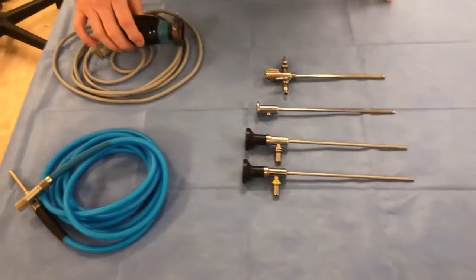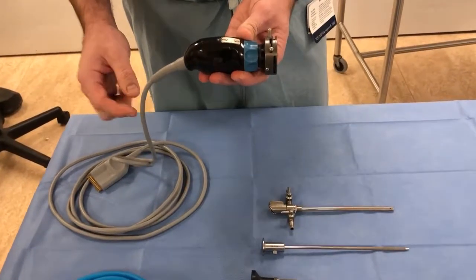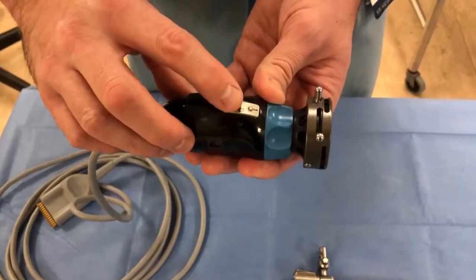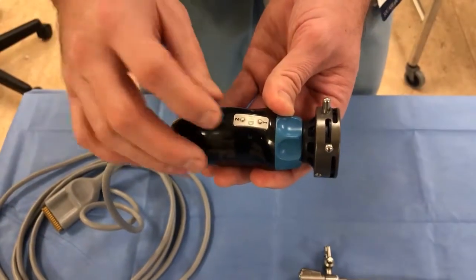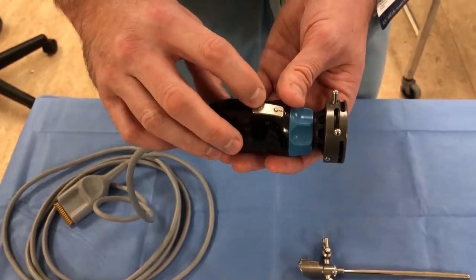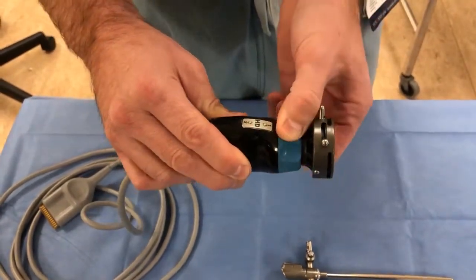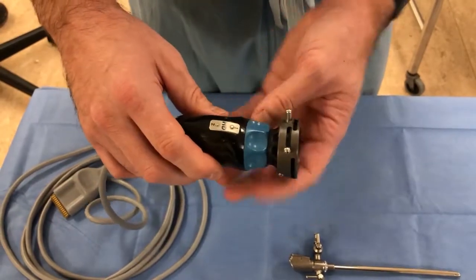The other key component to visualization is the arthroscopic camera. It has a cord coming out the back, and generally to orient yourself on the horizon the cord is pointing down. There are buttons on the camera that allow you to take still pictures or videos — sometimes set for a single press or a prolonged or double press; check with your institution to confirm. You can also adjust brightness and other facets of the arthroscope. There's a focus ring on every arthroscope that you twist back and forth to fix focus, and a coupling mechanism for attaching it to the arthroscope.